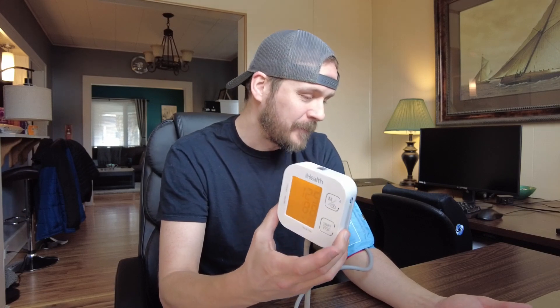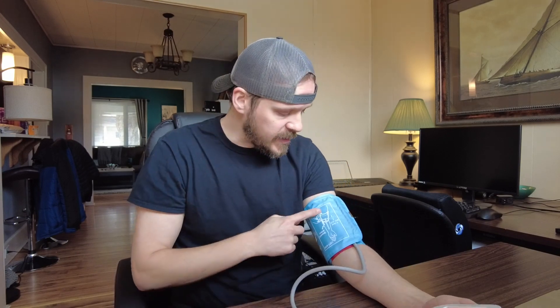You can see the little heart icon on there showing it's successfully monitoring, and then it will come up with the results along with color coding. Green is good, yellow is high to normal, and red is in the danger zone. I did this multiple times — the first time I was completely in the optimal zone. But now that I'm filming a video, my heart rate is up a little bit. When I did it by myself I was green, and when I do it in front of a camera it's yellow. It's very accurate and easy to use.